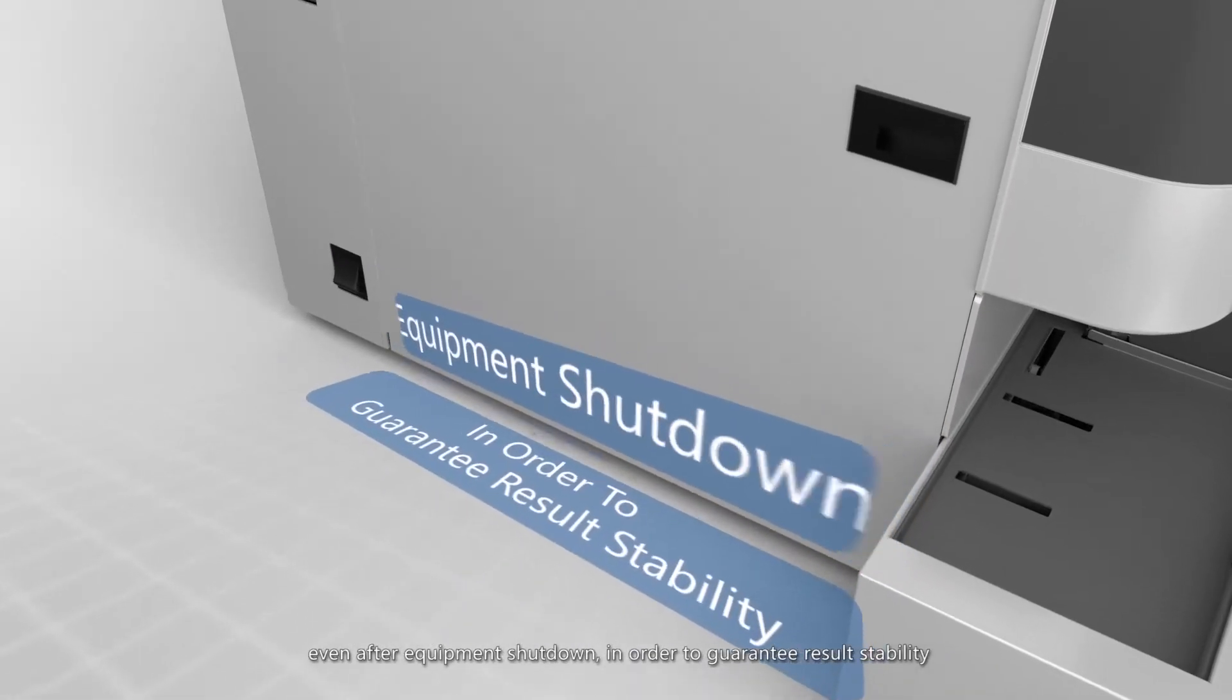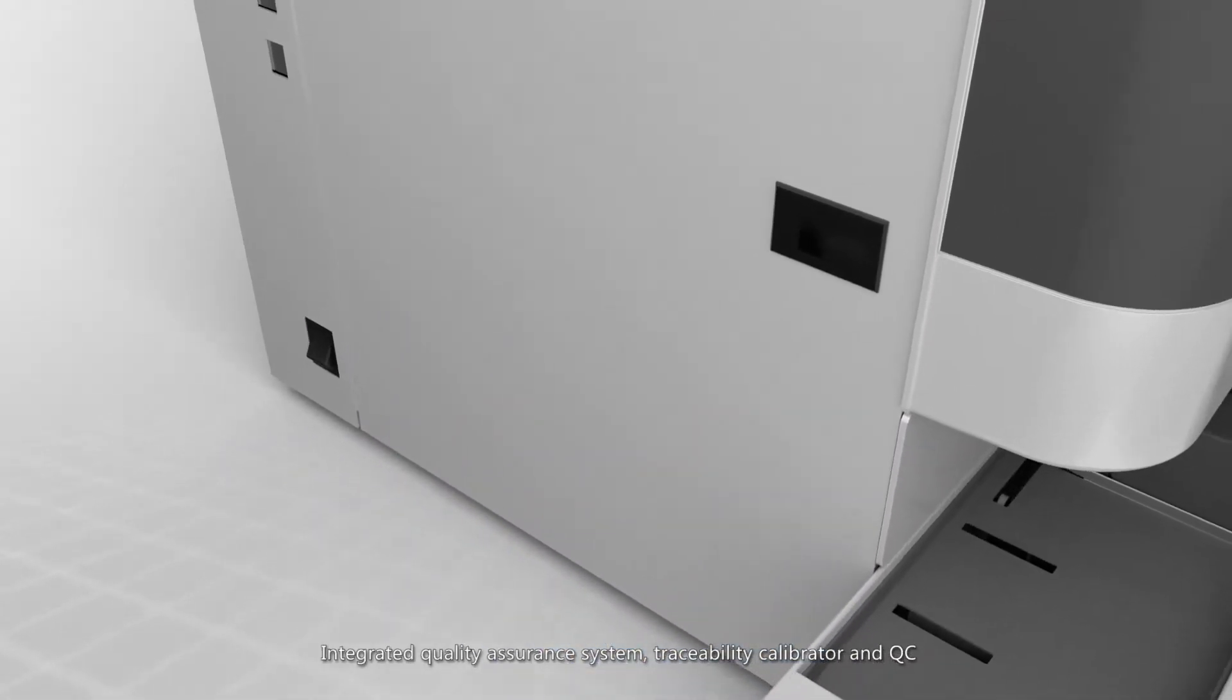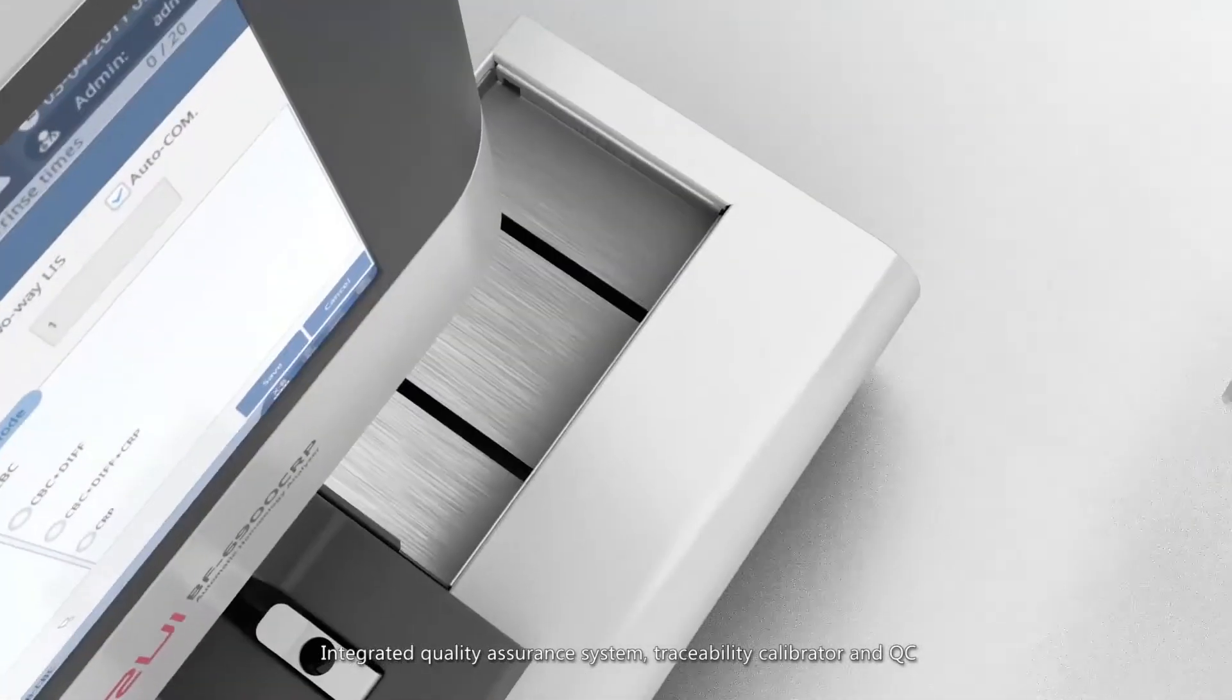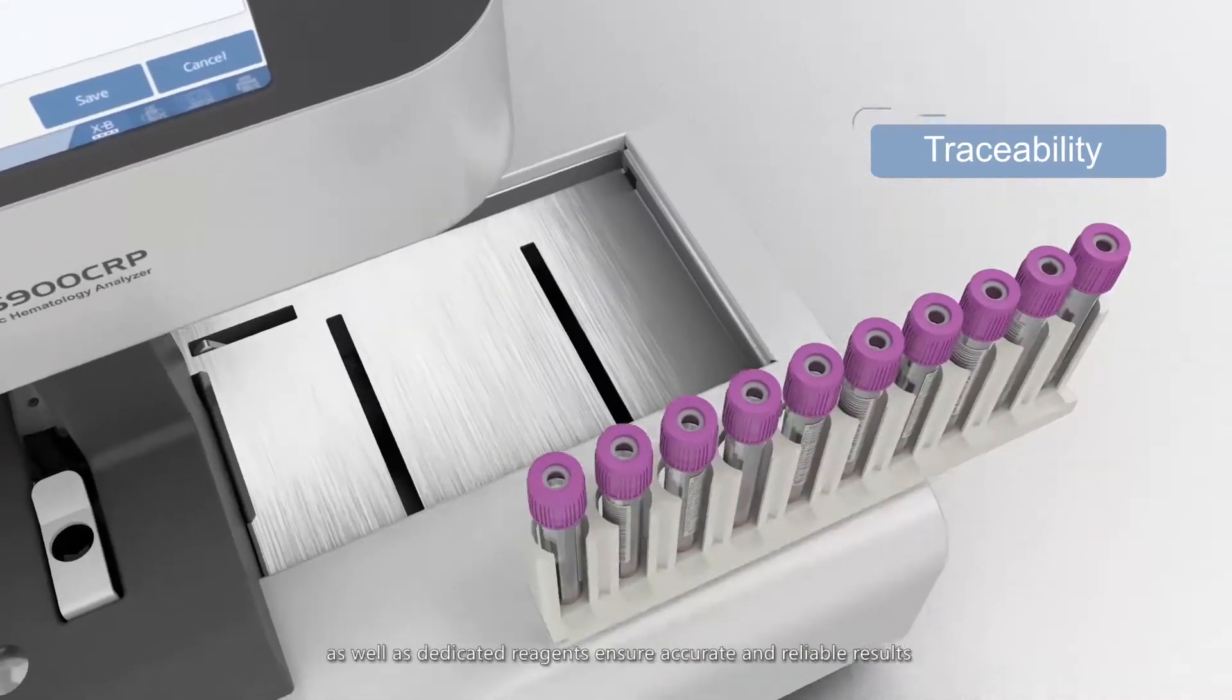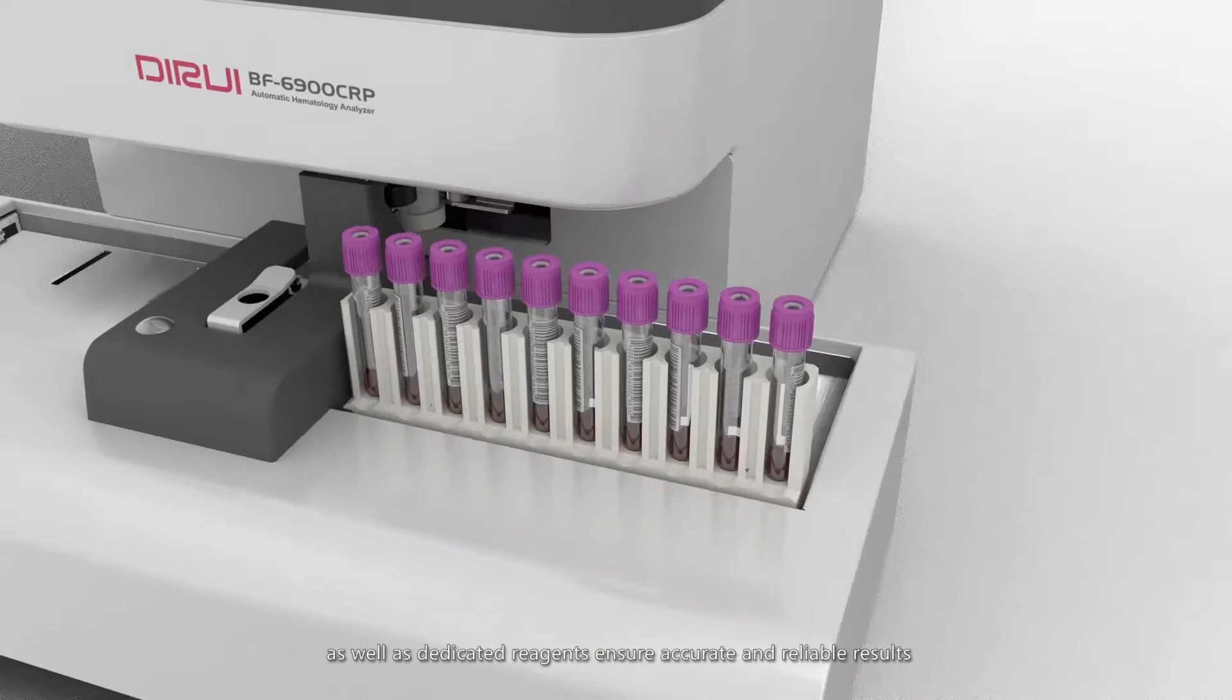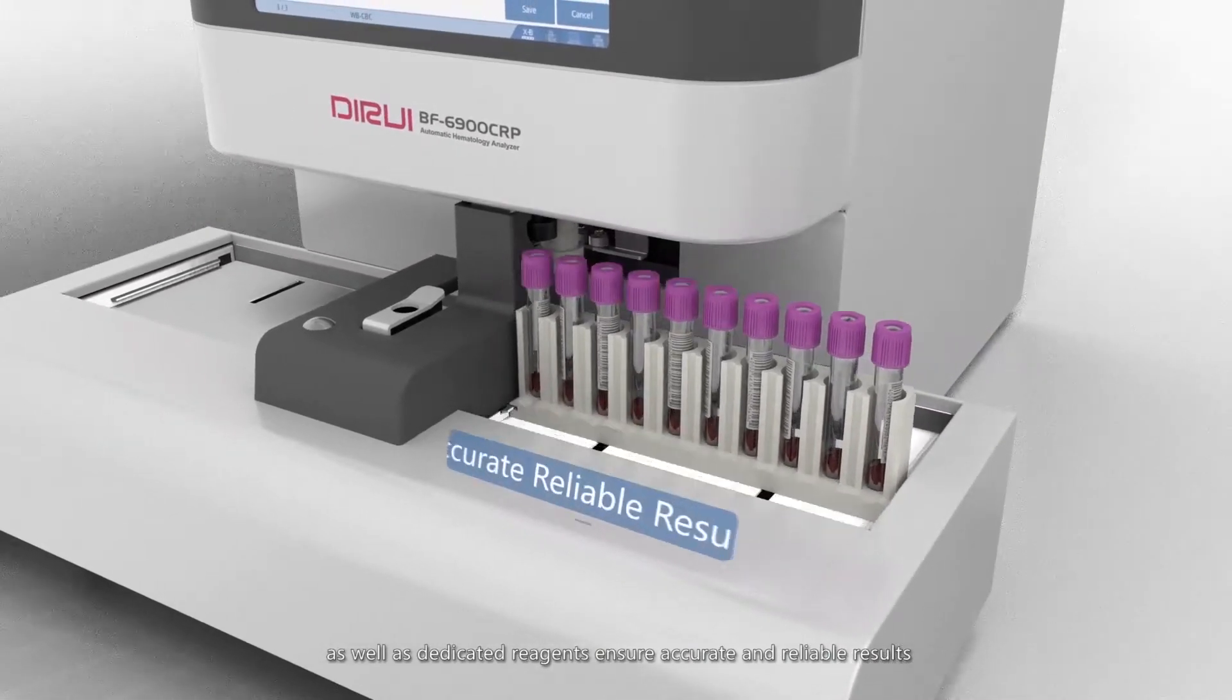Integrated quality assurance system, traceability calibrator, and QC, as well as dedicated reagents ensure accurate and reliable results.